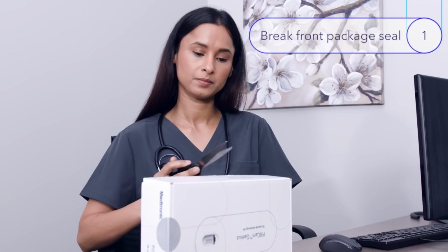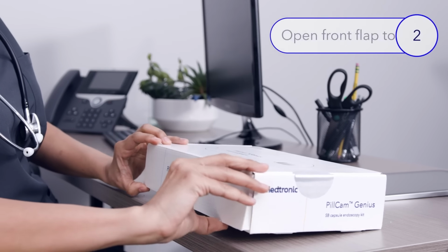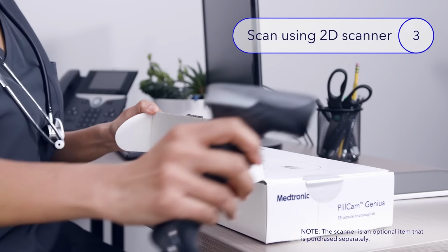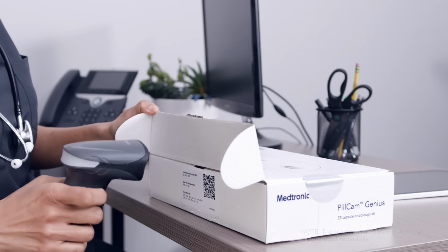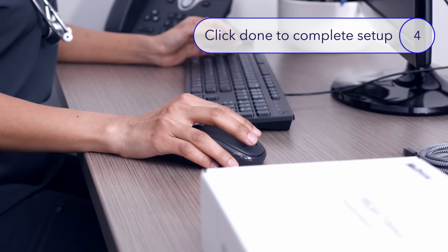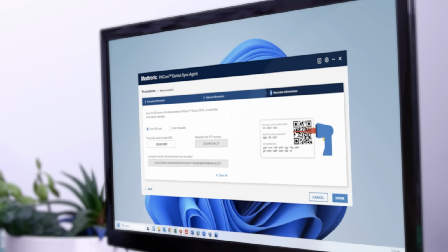First, break the front package seal. Then open the front flap to expose the QR code. Scan it using your 2D barcode scanner. Relevant information will automatically be transferred to your Genius Sync Agent. Once the kit information has been added, click Done to complete patient setup.